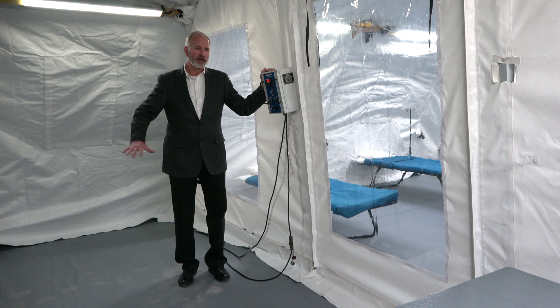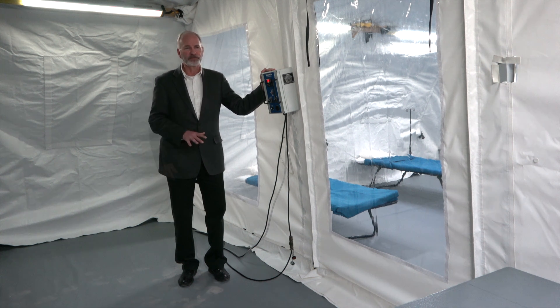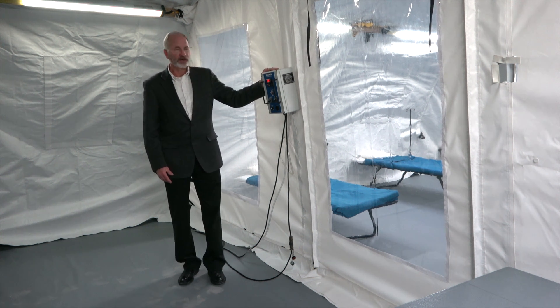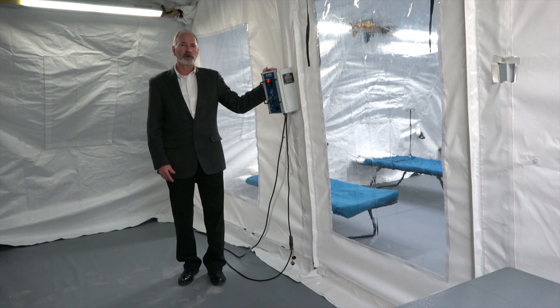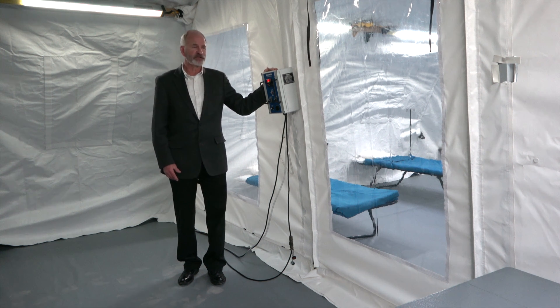Out here this would be your anteroom, your nursing station. We also have right here a major component of the negative pressure isolation system.